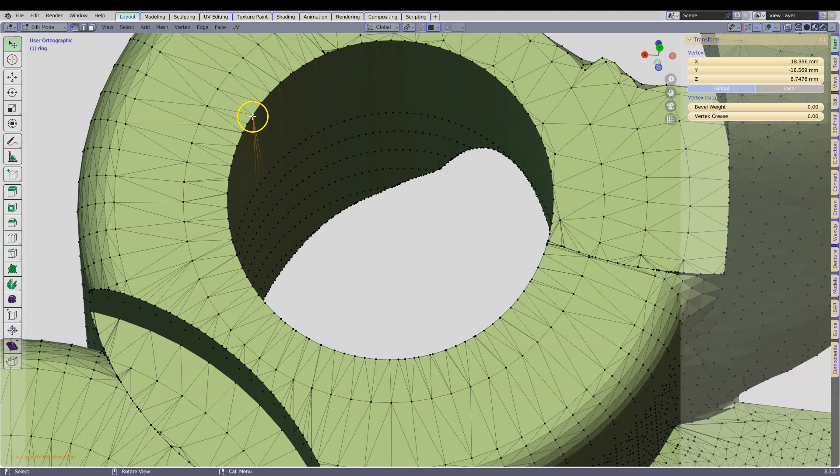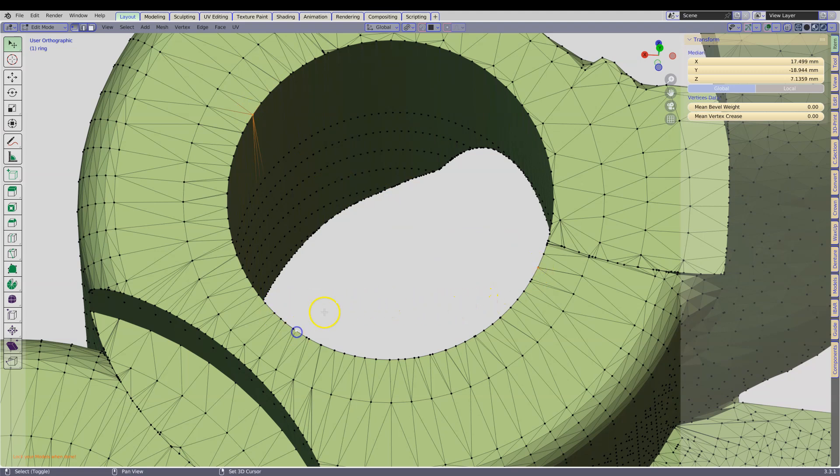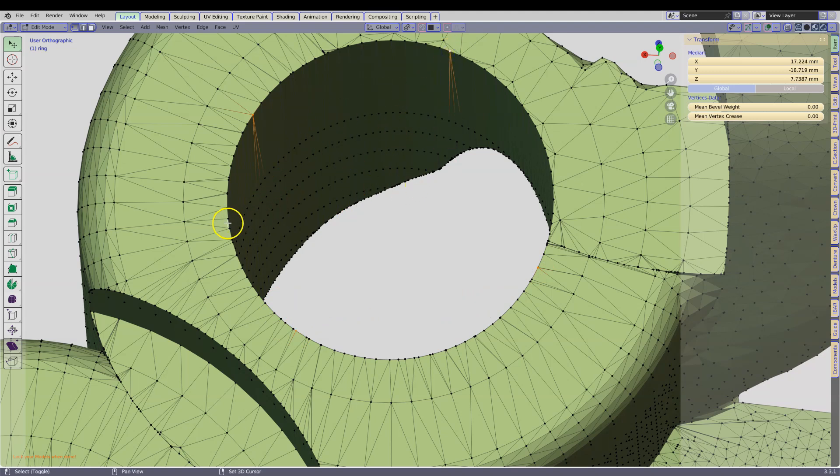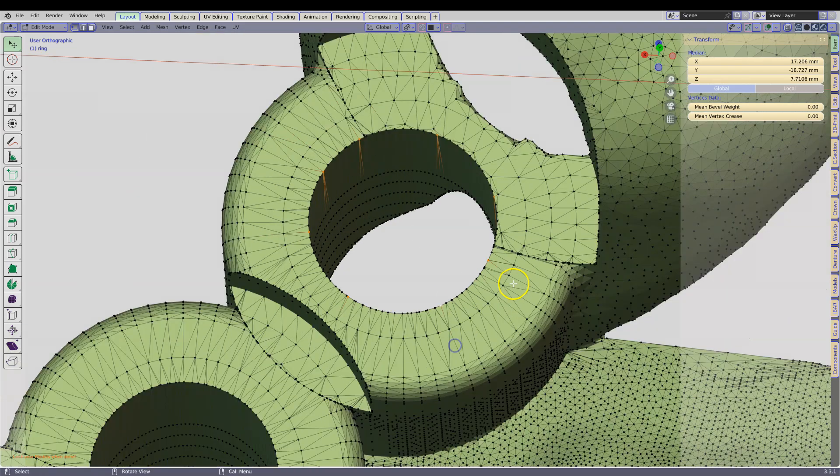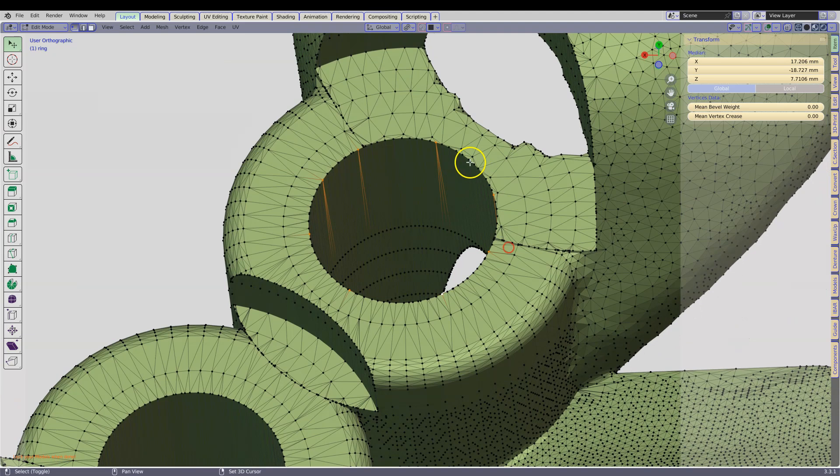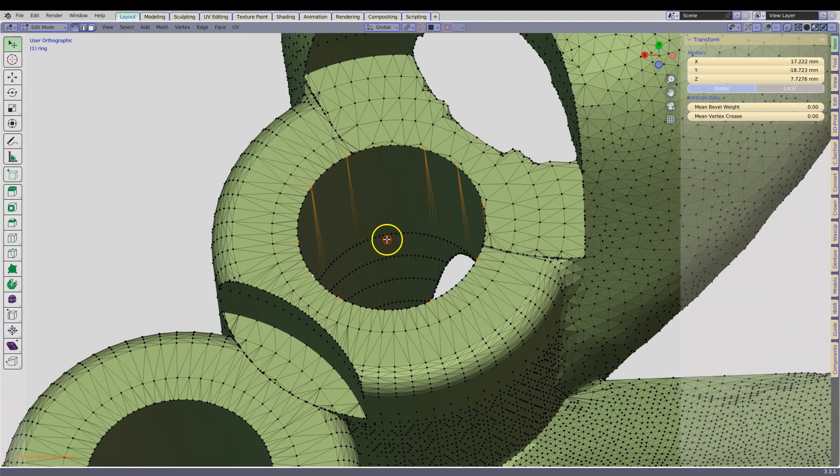So here I have selected one. Shift left click, so we are going to go straight across to the other side. And then we are going to click on another one on this side, another one on this side. So that's four. Let's just add a few more to that.